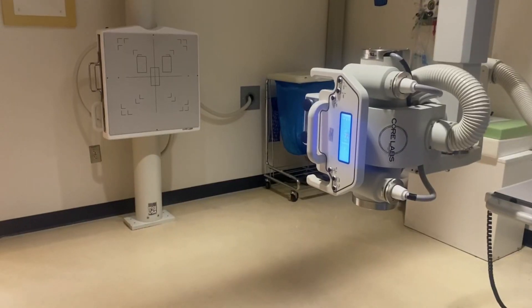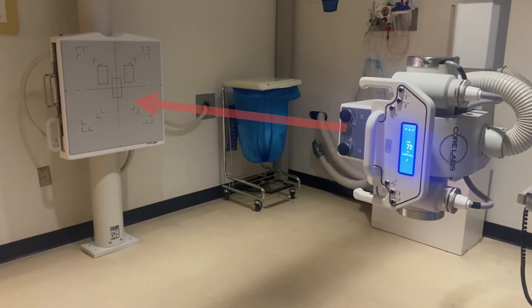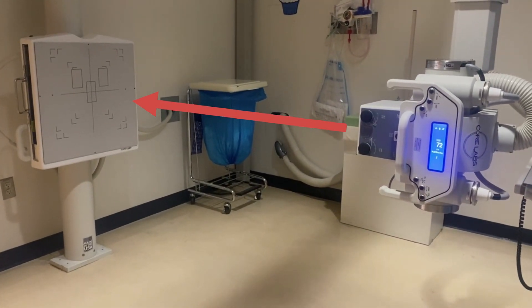So how does this actually work? The KV and the MA will continue to exit the x-ray tube and expose the patient in the wall bucky or table bucky until those photo cells say they've reached their expected number of x-rays and can terminate the exposure.